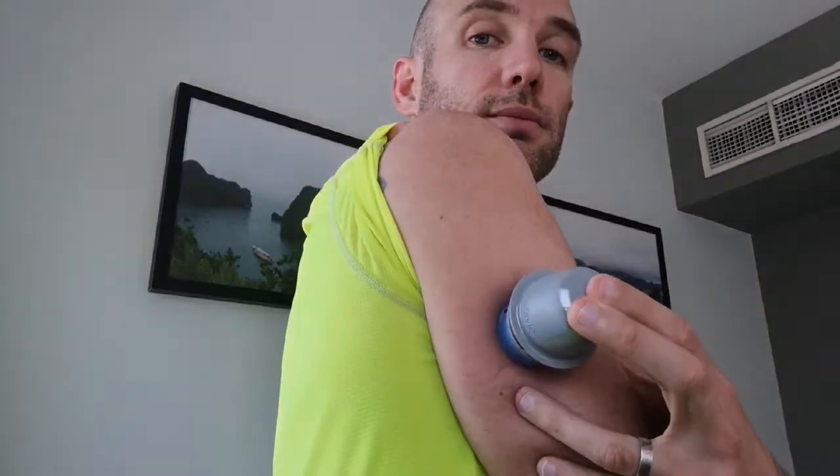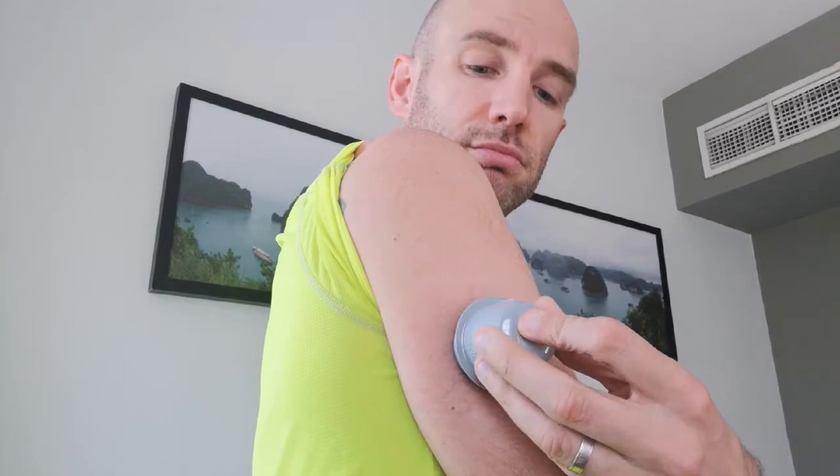So find a bit that is a little bit fatty in between the muscle — that is my recommendation. And a quick, easy one-two-three press, remove — voila, it is that simple. Spring loaded. One of the many reasons why I love this little thing.